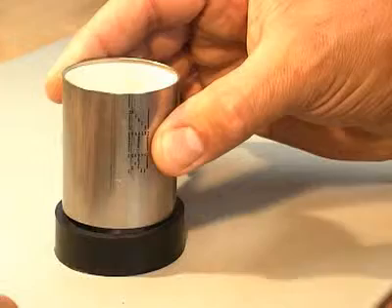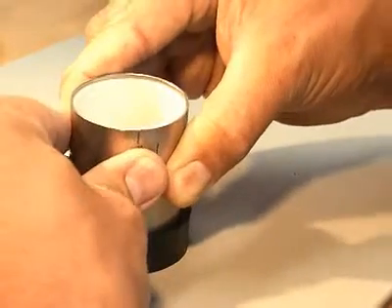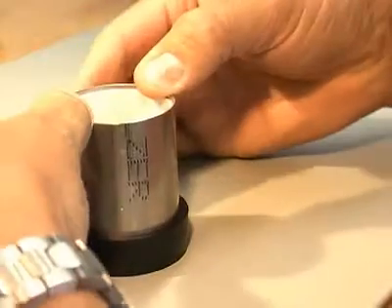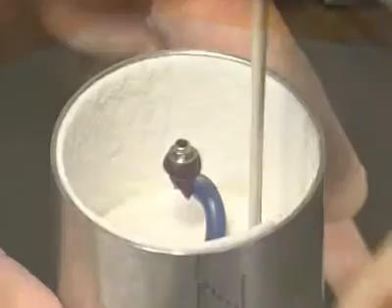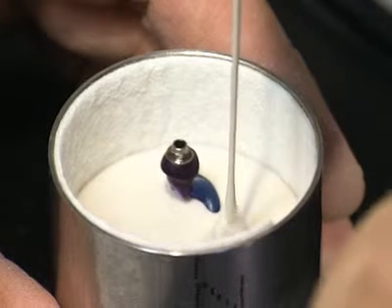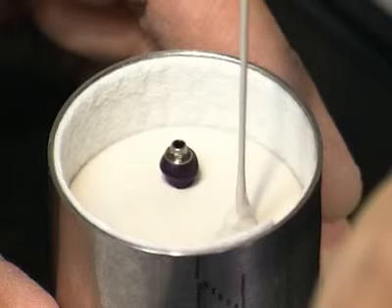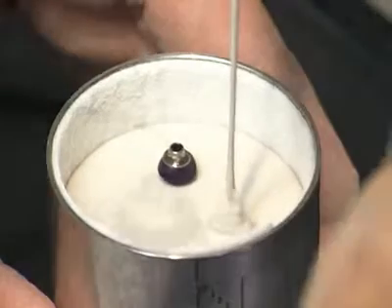When processing the investment material, follow the investment material manufacturer's instructions. Observe the recommended mixing ratio and preheating time exactly. The use of investment materials for rapid heating methods, like speed investment materials, is not recommended.